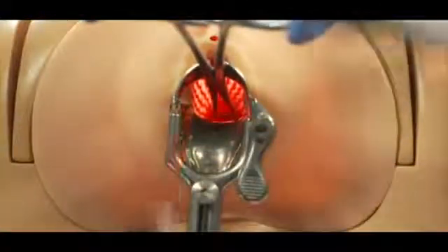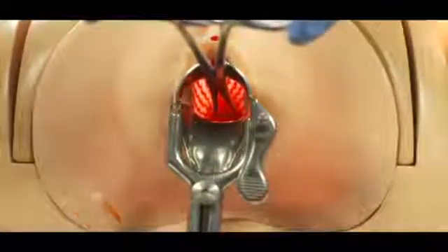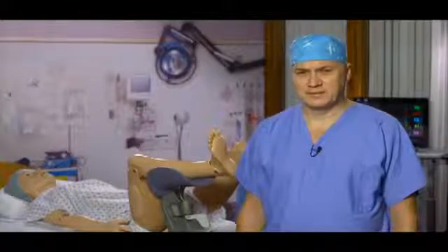And we got some material. You've seen two examples of Chloe's use for teaching vaginal procedures or scenarios. Many other examples exist.